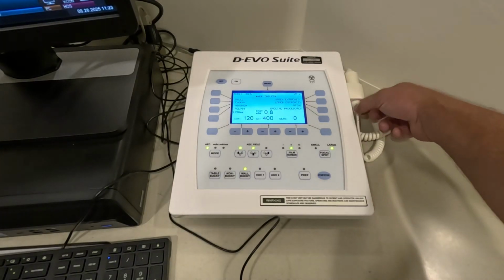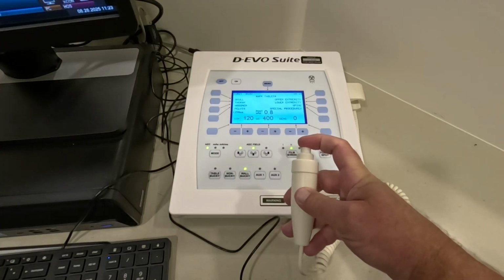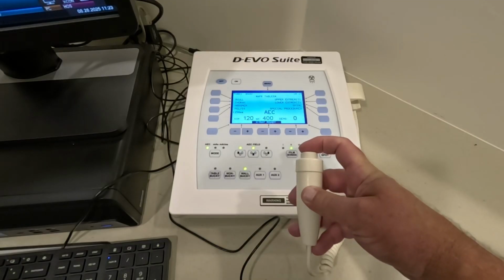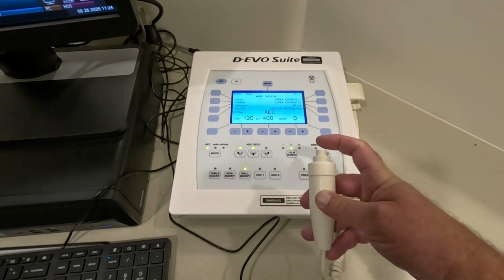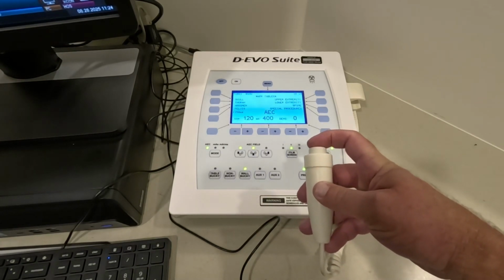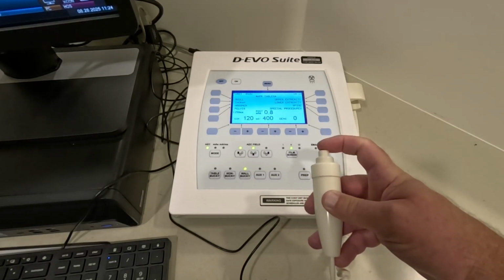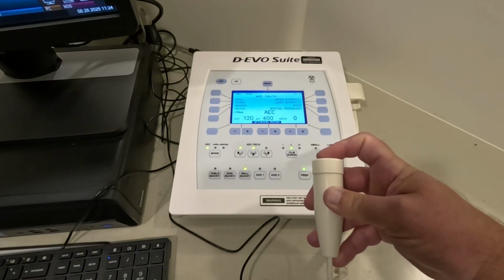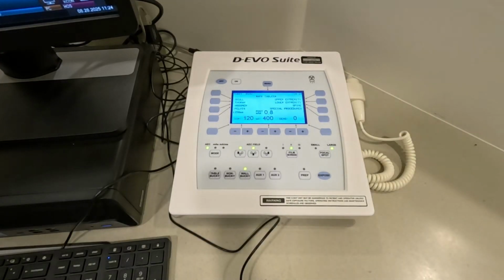There's another button here as well, and this is a 2-position button. If I push down just this top button, that's a rotor. I can spin that all day long, but I'm just creating a lot of heat, and it's bad for the x-ray tube, and I didn't make any x-rays. If I push it down and wait that second, now I can make an exposure. Also, if I push this straight through, again, notice it takes about a second to get up to speed before it'll make an exposure.